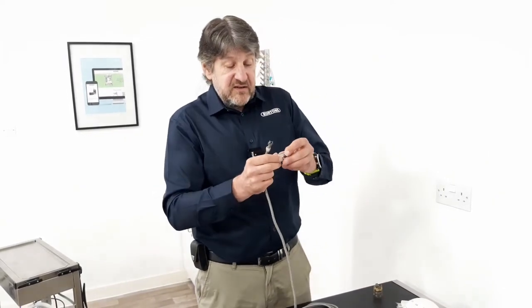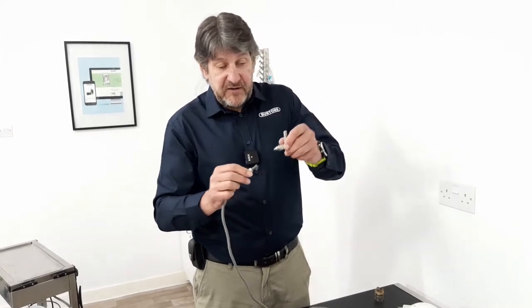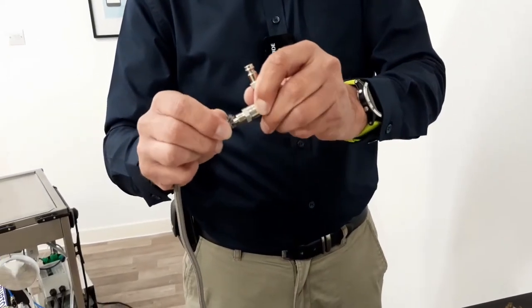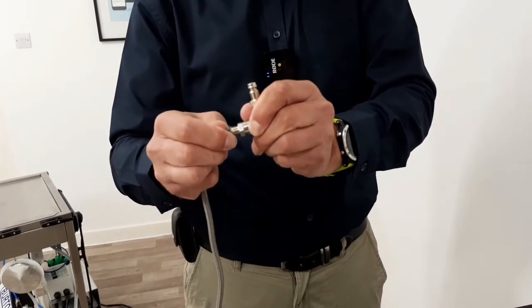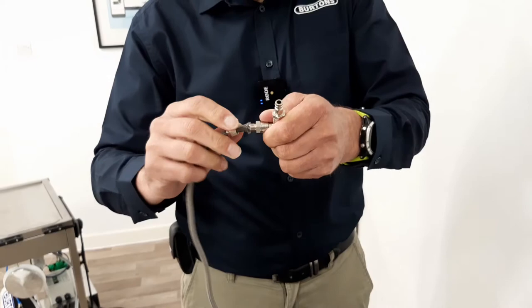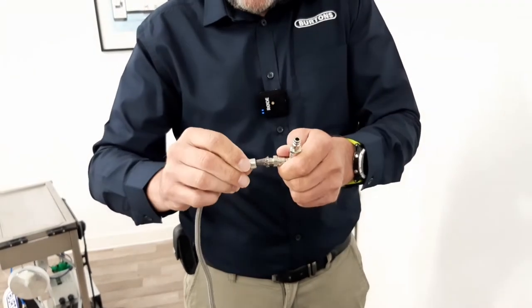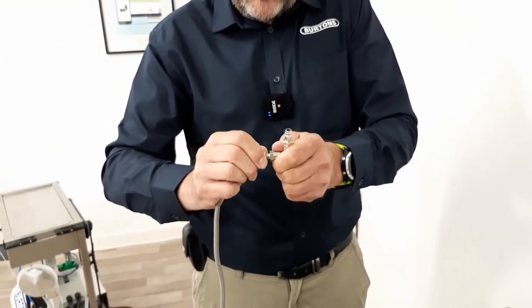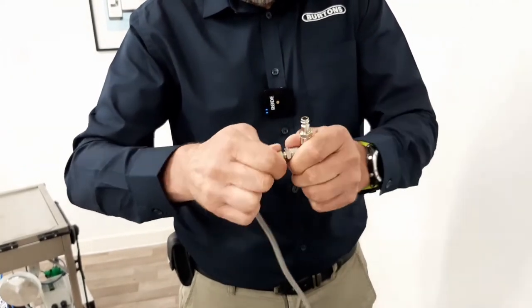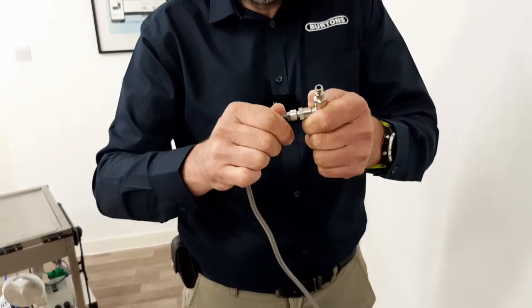This then connects to the L bracket by simply pushing the rubber hose that is inside the protective braided coating, and then screw the lock ring into place.